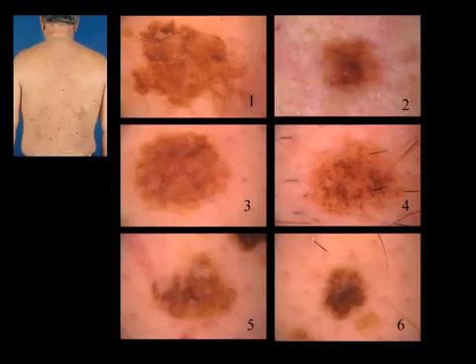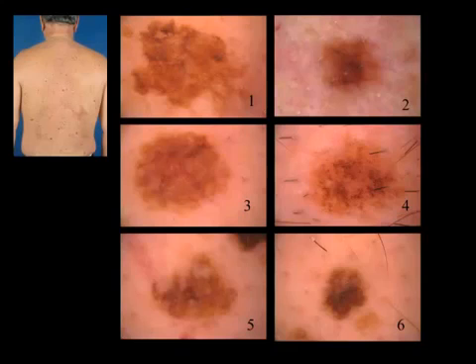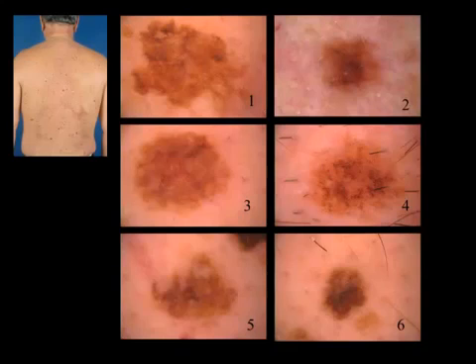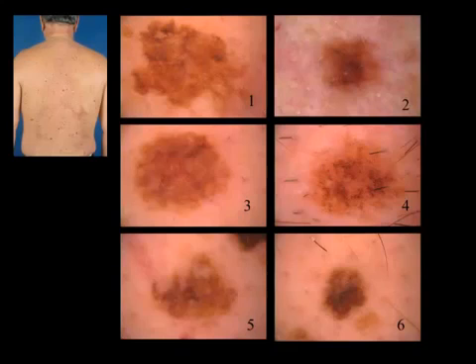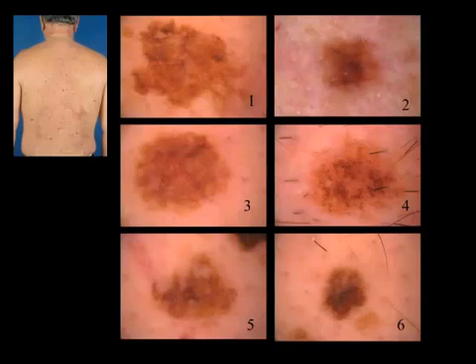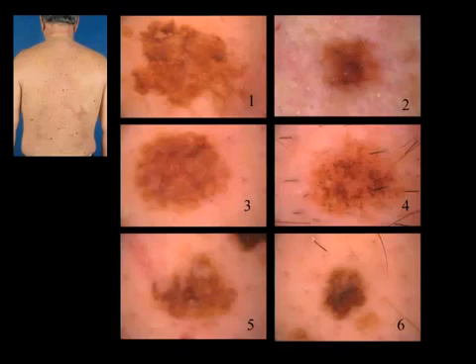Which one is the melanoma, and which lesion do you want to excise? Only one? Two? All of them? And if you excise only one, which one?